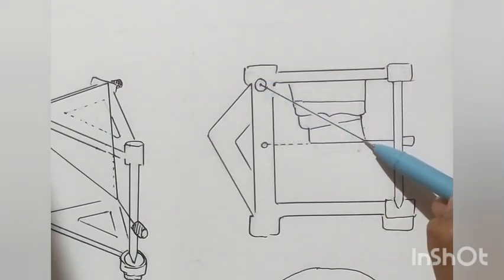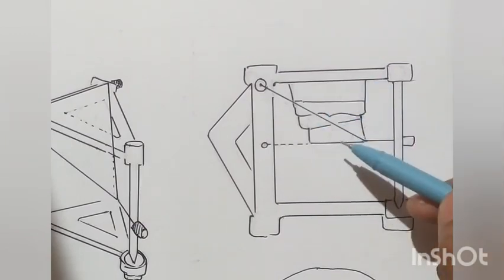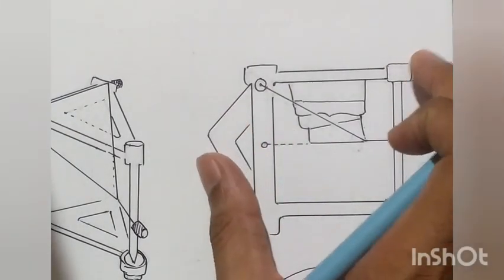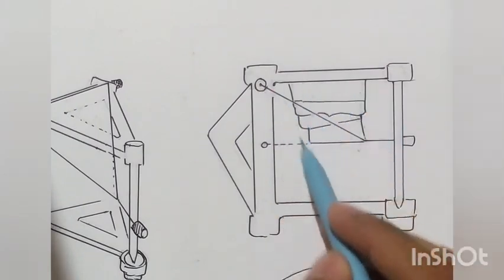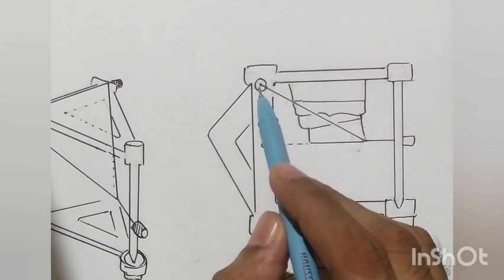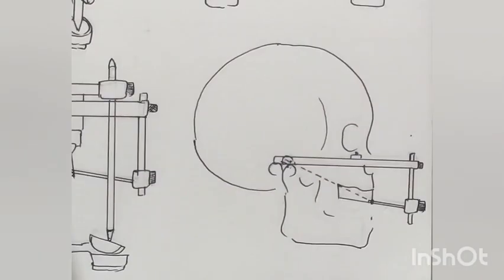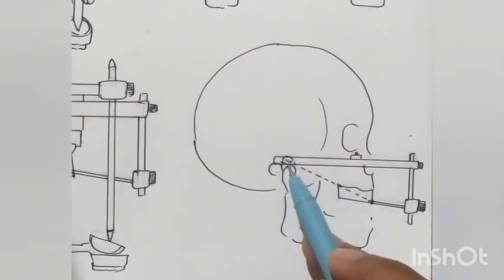This angle is fixed in the mean value articulator, but in the patient it can vary — the maxillary cast or central incisors may be in different positions. We cannot customize the mounting in the mean value articulator, and for that we need something which transfers the relation of the maxillary cast to the condylar rods, and for that we use the face bow.